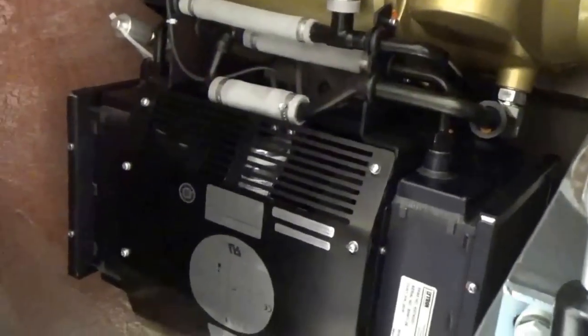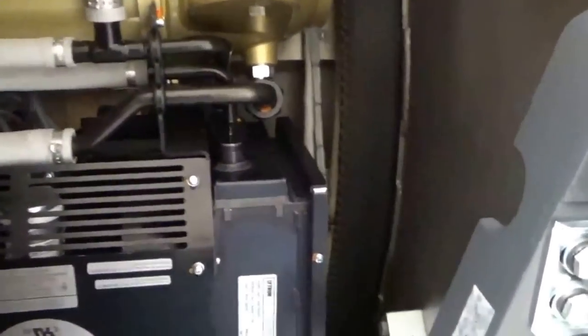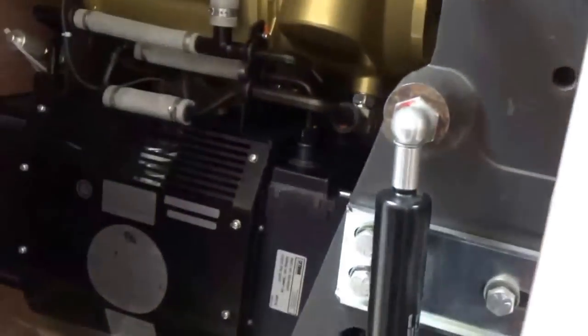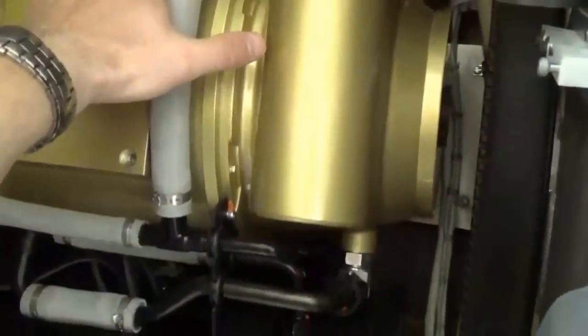That's a little idea of what's inside a CT gantry. This machine has slip ring technology, meaning all of the signals on the non-rotating side of the gantry go through those slip rings and brushes to get to the rotating side of the gantry. There are no physical wires connected between the rotating part and the stationary part of the gantry — everything goes through those slip rings inside here.